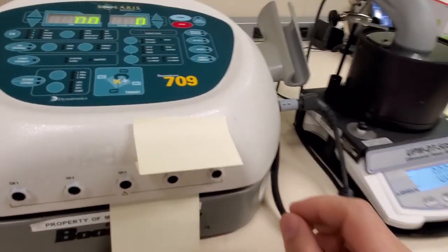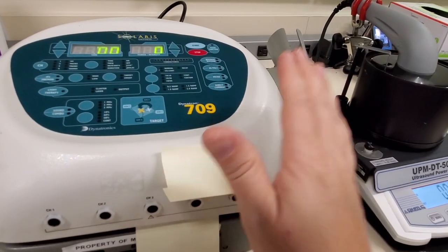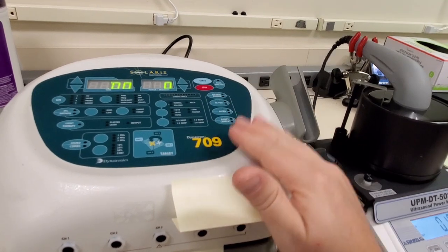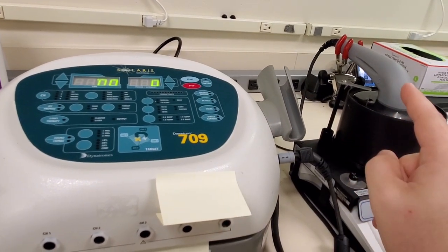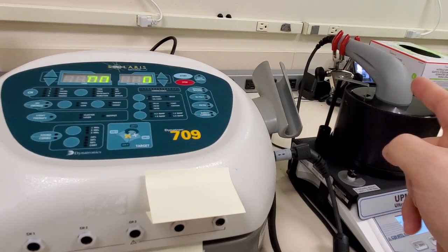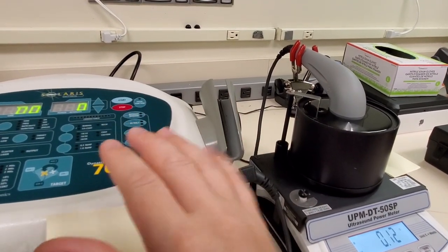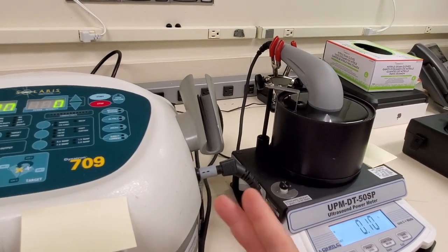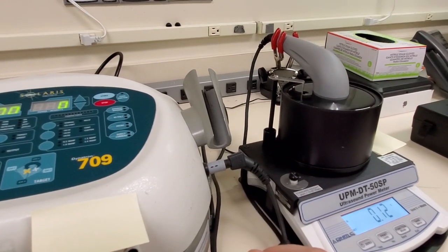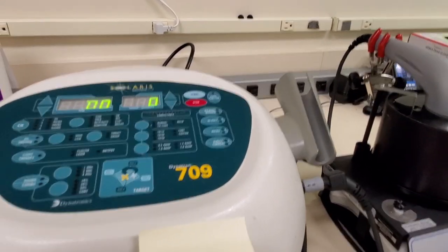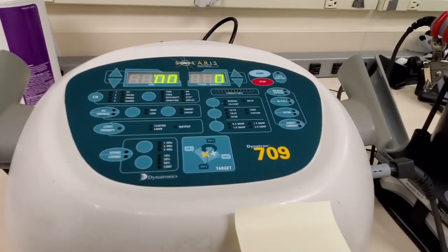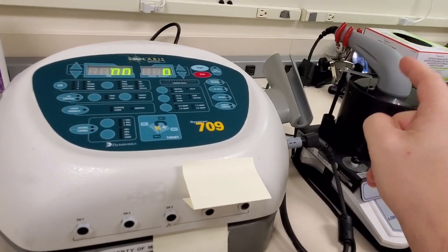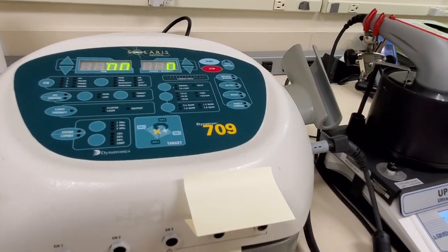What happened is I was mid-calibration and my power cord wiggled out of my base unit and it lost power mid-calibration. Well when you begin a calibration, it's going to overwrite the parameters for your head. So the unit writes the parameters to the head for its impedance, its power output calibration settings, etc. And when you lose those settings, you have nothing and you have to start from scratch. So that's why this guy's in for repair. I have to go through manually and type in the exact parameters for the head back into the unit.